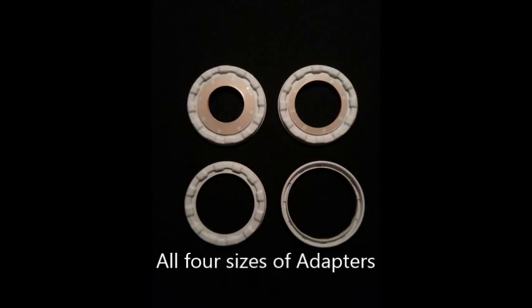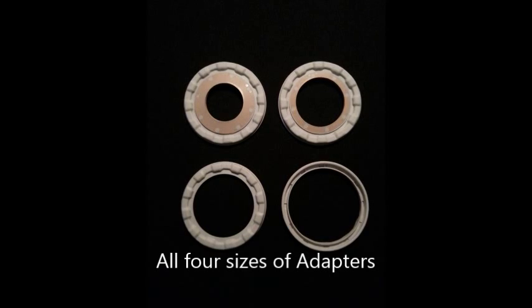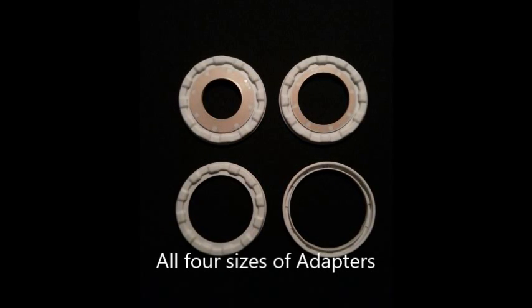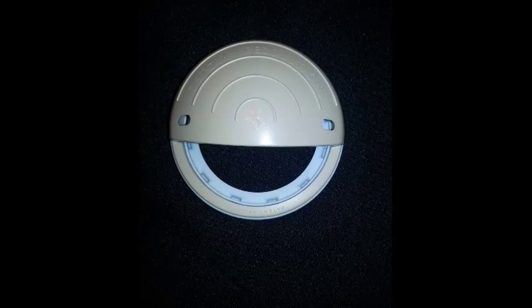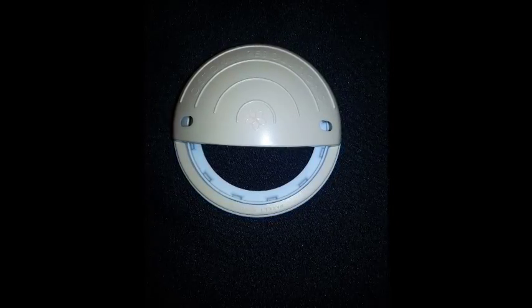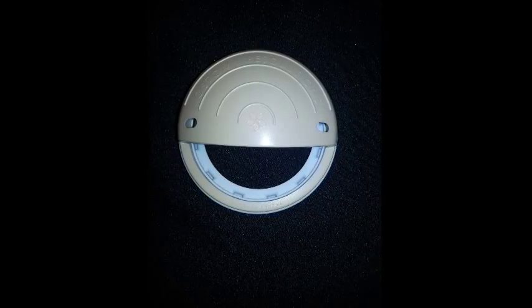Adapters complementing your appliance size prevent slippage, and depending on what style jeans you wear, or where your stoma is located, you may want to attach an elastic appliance belt, or not, you decide.